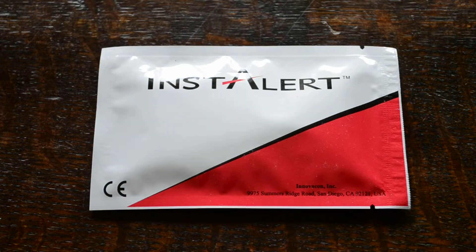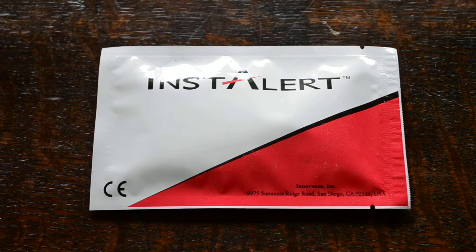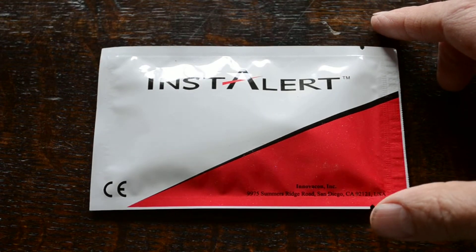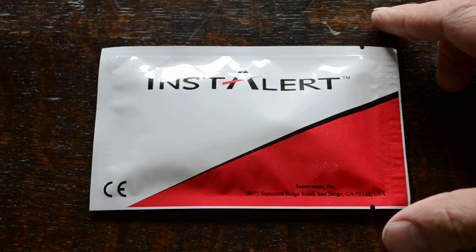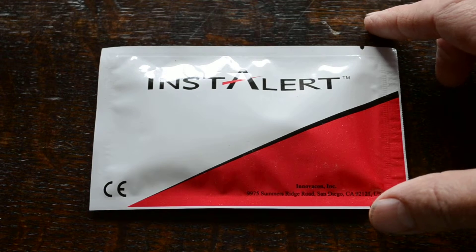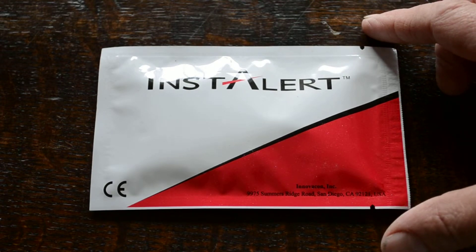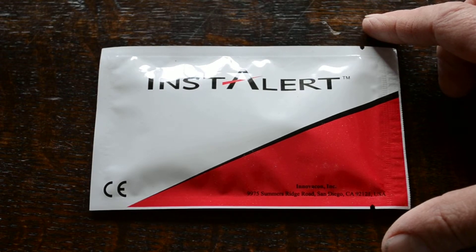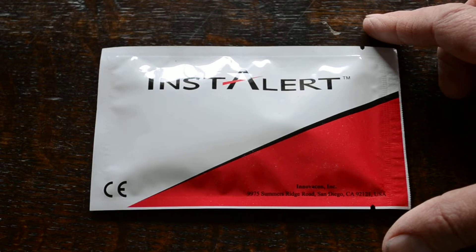Welcome to this video presentation of the Instalert 5 panel drug test. You're looking at the foil for the Instalert brand of drugs of abuse screening tests. This is a urine drug test manufactured by Innovacon in the Instalert branding for CE European support and distribution. It's for sale to professional agencies, healthcare, businesses, universities — anybody needing to run a urine drug screen.